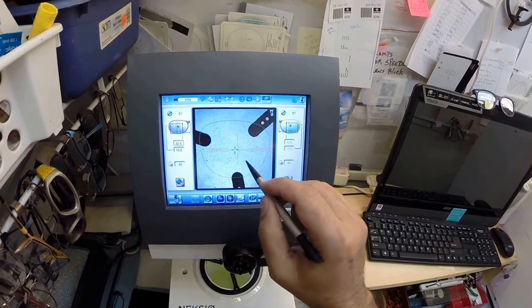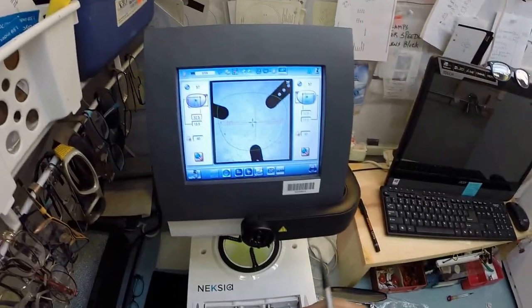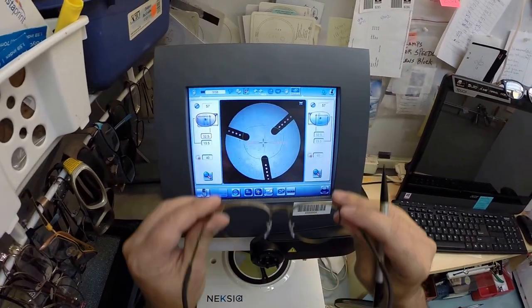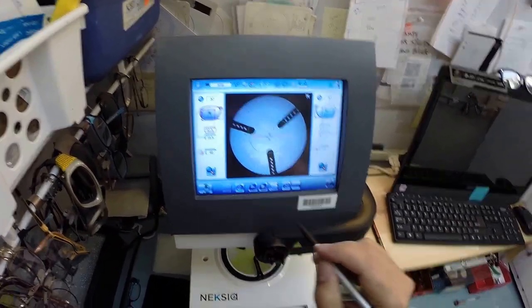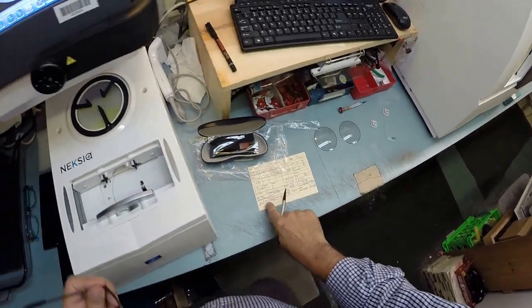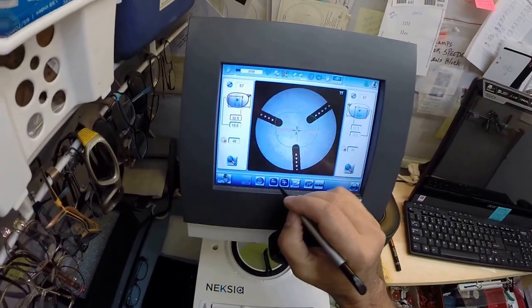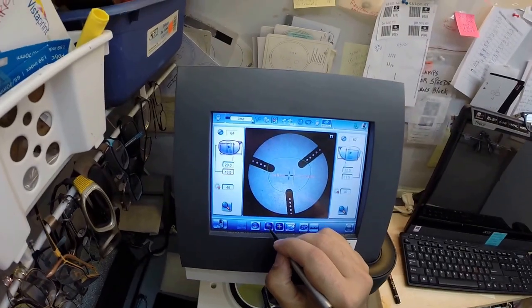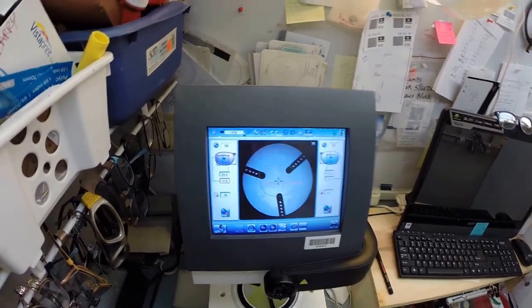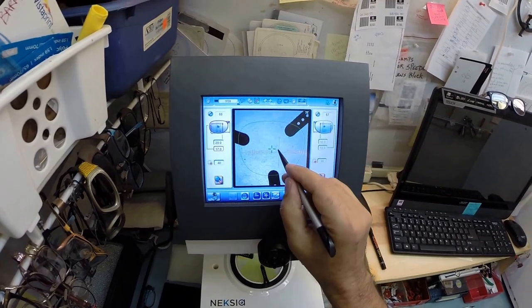That is the shape of the lens that is about to show up on the screen, that's only magnified while I work on it. If I minify it you will see that is the shape of the lens I will be cutting, that green outline. I'm gonna put in your pupillary distance into that box right there and I'm gonna put the bifocal height right here in this box. Now let's go ahead and magnify it again. I'm gonna be cutting a line style bifocal so I need to change the grid.